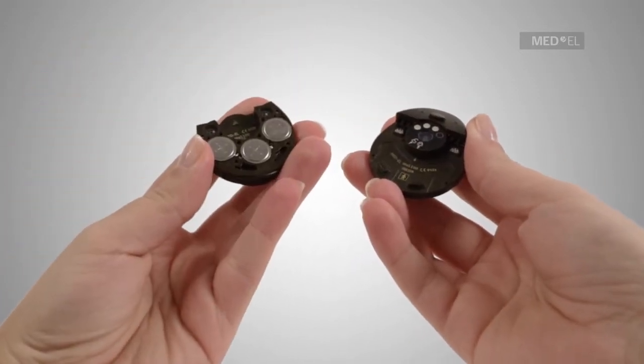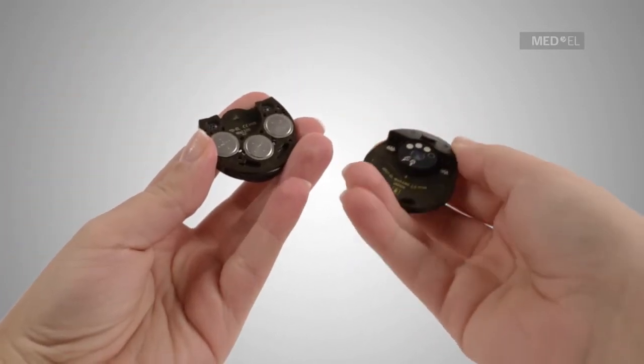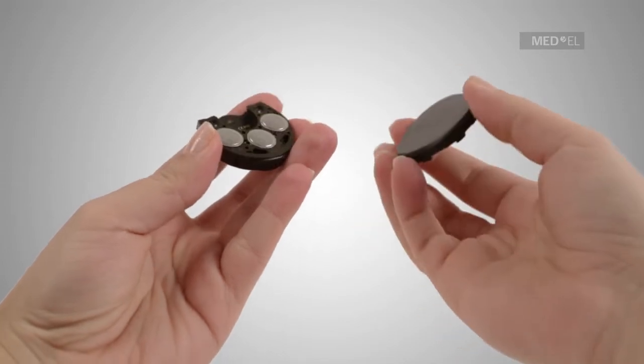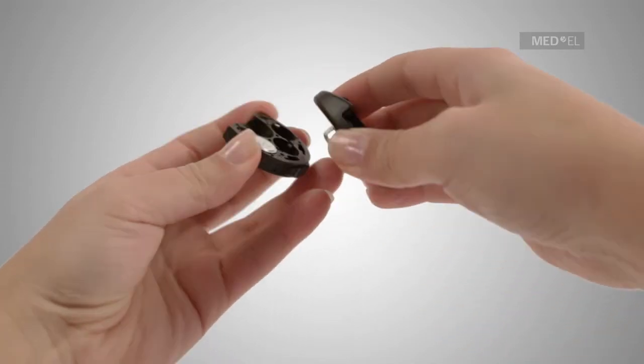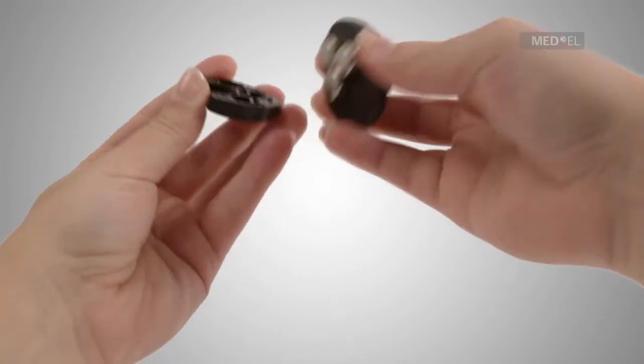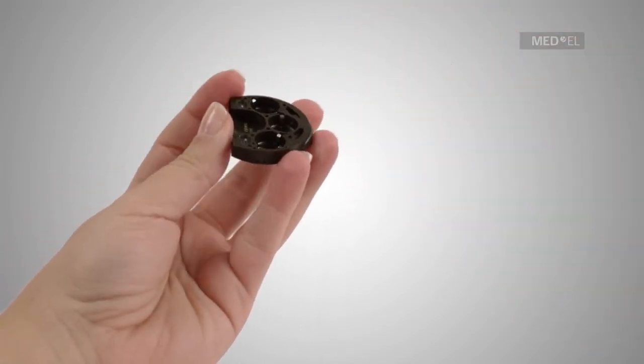Unlocking the rondo allows you to lift up the battery pack. Once the battery pack has been removed, use the magnetic underside of the control unit to remove the zinc air batteries.